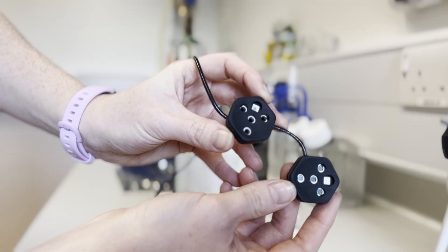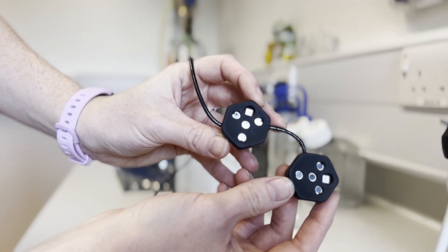The equipment I'm using is an array of hexagonal imaging tiles. These have three light sources and four detectors on each tile.